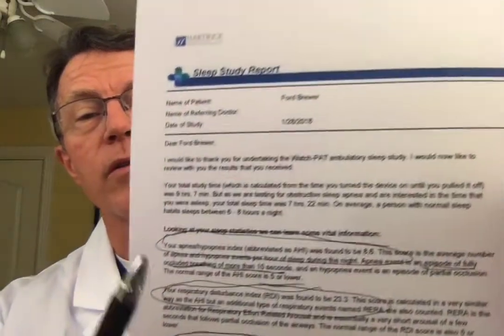They actually try to interpret REM sleep. Now, like most biomedical manufacturers, they say the science behind their product is impeccable. Is it really? Well, the science behind pulse oximetry is impeccable, and pulse oximetry is a pretty standard commodity technology now, so I think the pulse oximetry technology is very reliable. The sleep sensor may be okay — not quite as much. Going all the way to rapid eye movement — REM sleep, which is incredibly important — I'm a little bit skeptical of the technology. Let's go through the report.